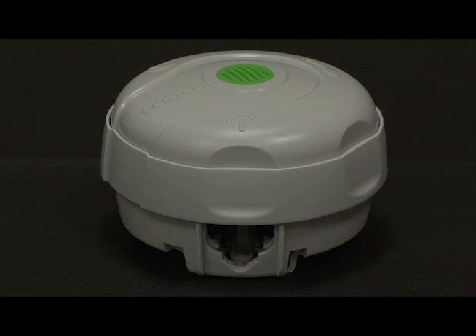V-sign membrane changers with a green dot can either be disposed of in an appropriate manner or optionally can be reused.